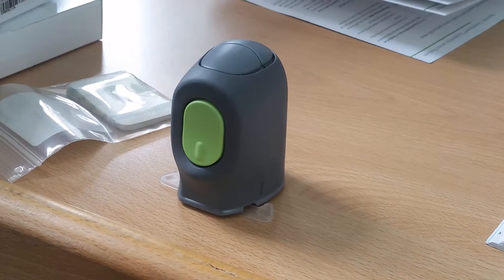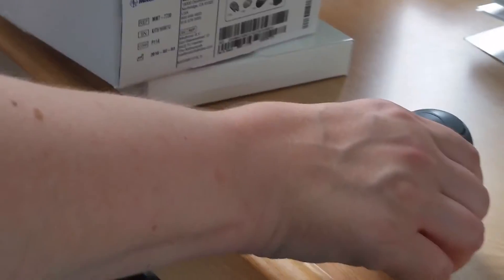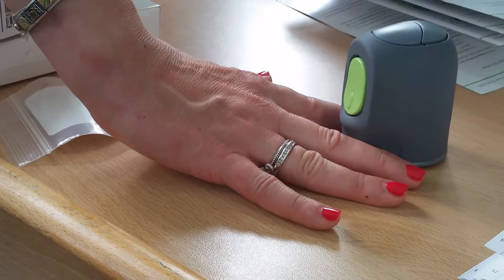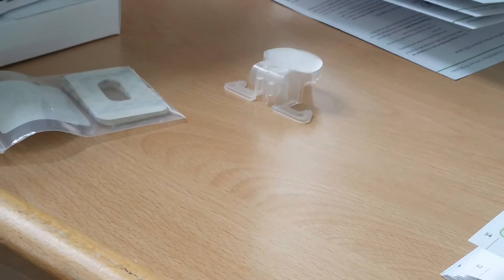It says number three: to remove the pedestal. That's what I was getting confused about, Wendy. Basically what you're going to do is keep it flat on the surface, put a finger either side, and all you're going to do is lift it up — hold the plastic bits on the desk.